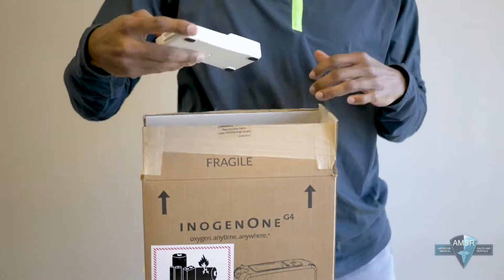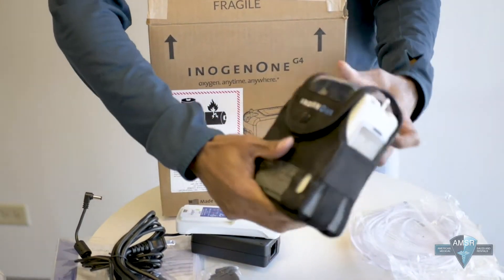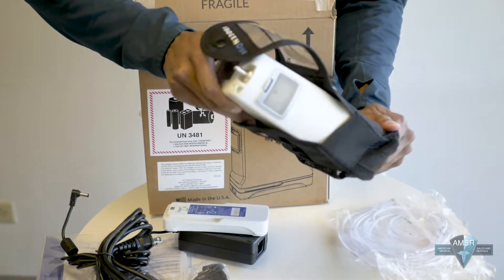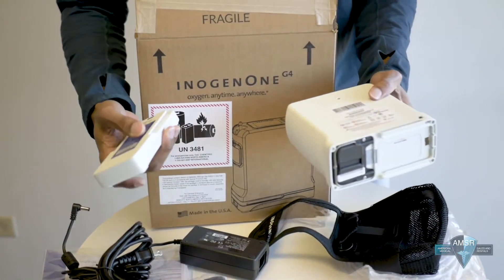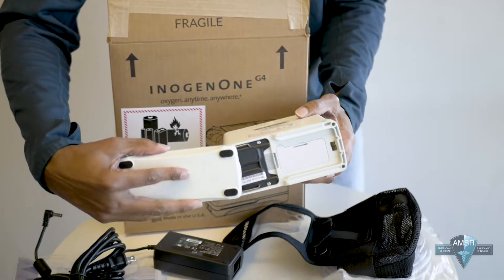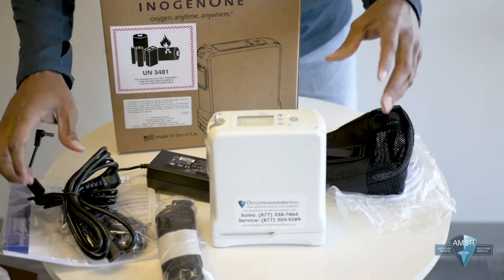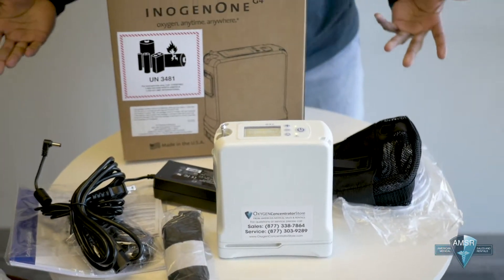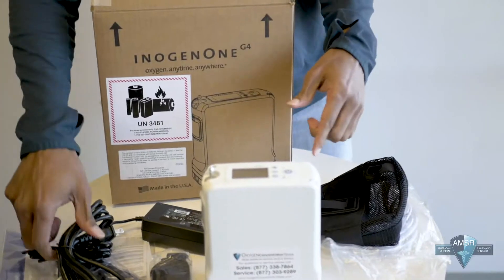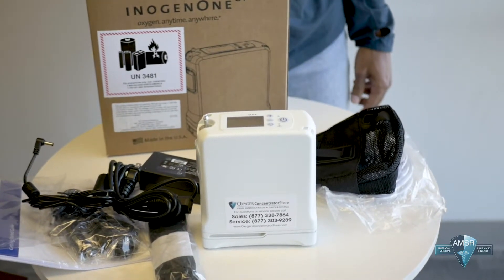And last but not least you have the battery. This is the battery that goes to the unit — it's really easy. You just slide the battery on like so. Typically the batteries will come about halfway charged from the manufacturer, so you definitely want to charge them. Go ahead and plug your AC adapter into your wall and start charging your battery immediately.